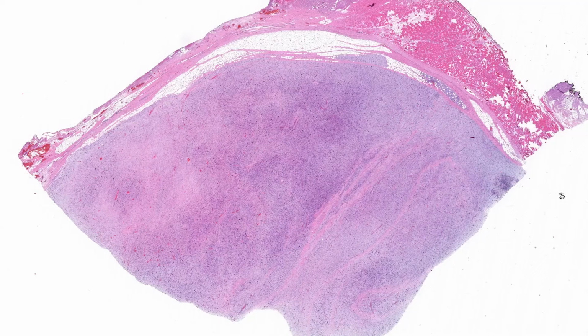in this video, I'm going to be going over another challenging soft tissue pathology case for new trainees. If you want to view these cases for yourself, you can find links to the digital slides in the video description.